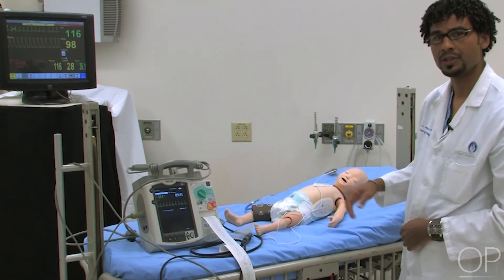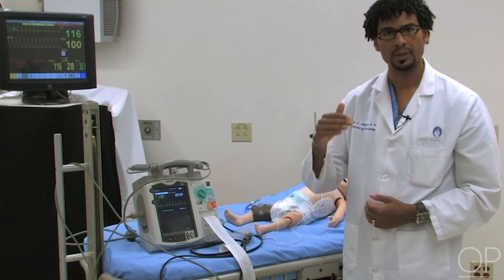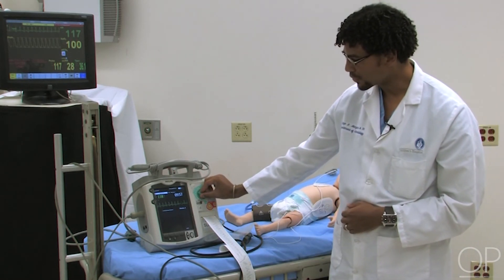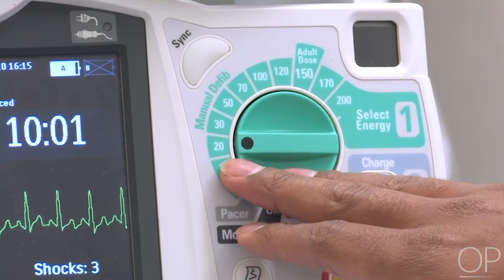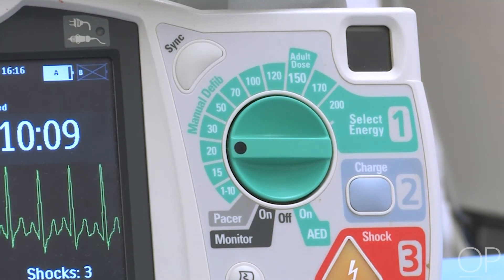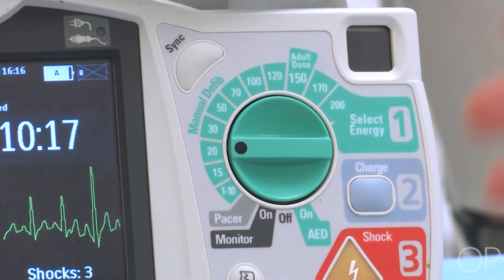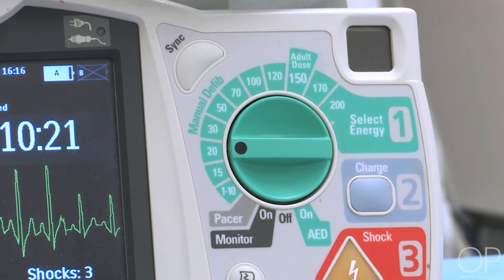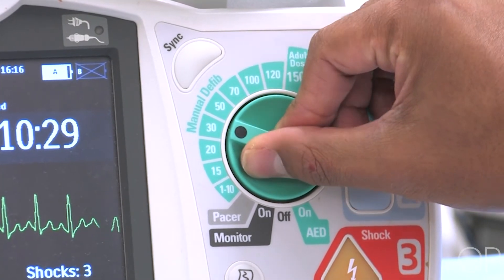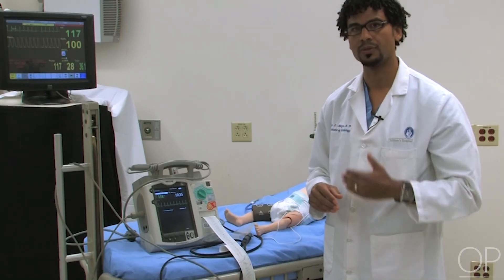Although you can dial in voltages on the machine, the intervals are quite often not absolutely graded. For this 10-kilogram infant, when we required our first shock at 20 joules, it was easy to select exactly 20 joules. After the first shock was unsuccessful, when we needed 4 joules per kilogram — 40 joules — there is no setting for 40 on this machine; you can choose either 30 or 50. If forced to make that choice, always round up. So the second and third shocks were delivered at 50 joules. You never round down on voltage.